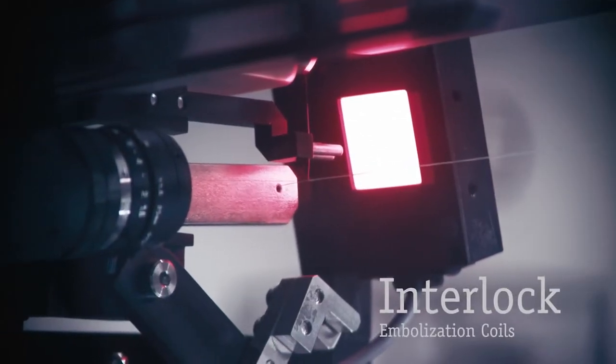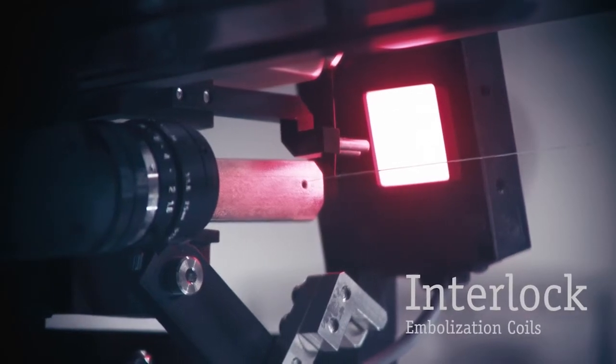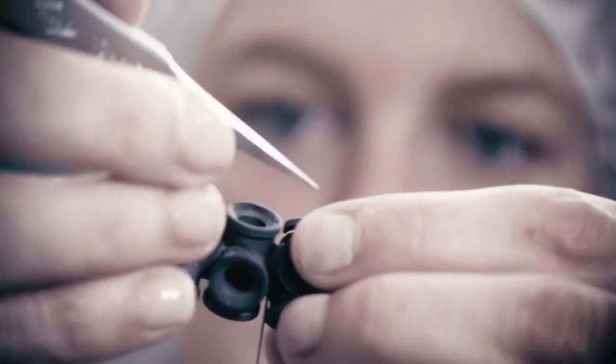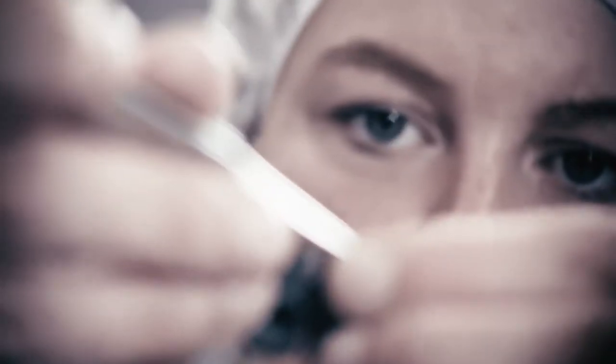Our Interlock and IDC detachable coils offer superior thrombogenicity via our unique combination of coil-within-a-coil technology paired with thrombosis-enhancing fibers.